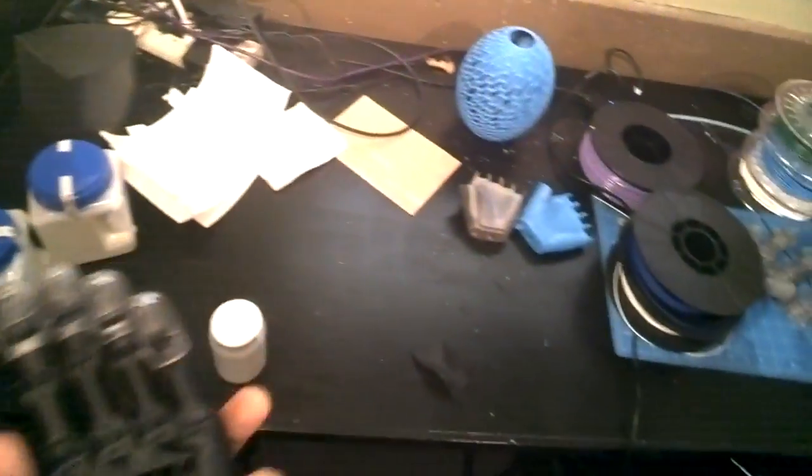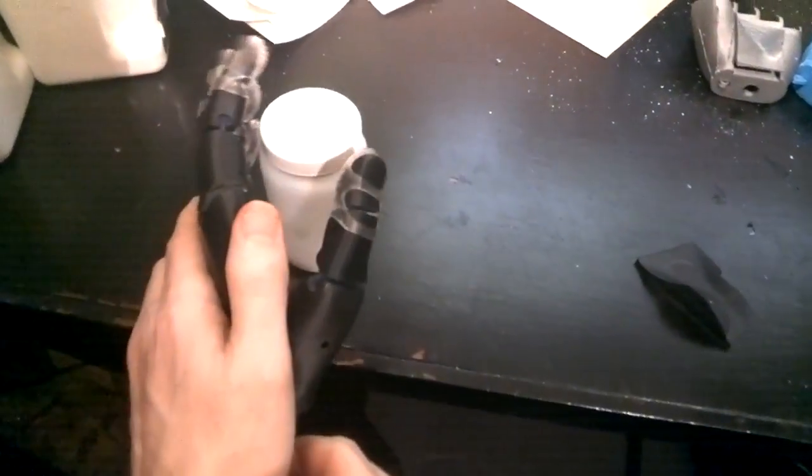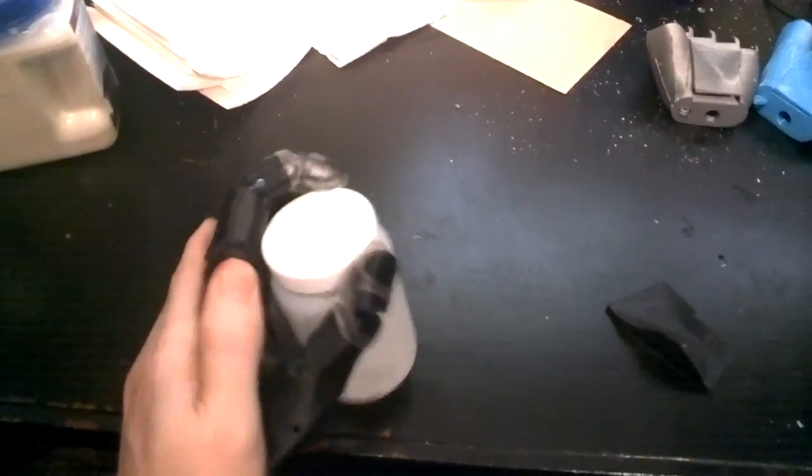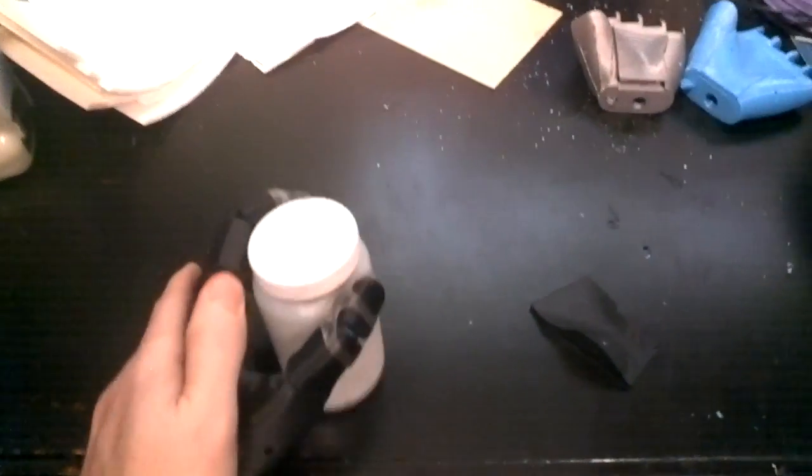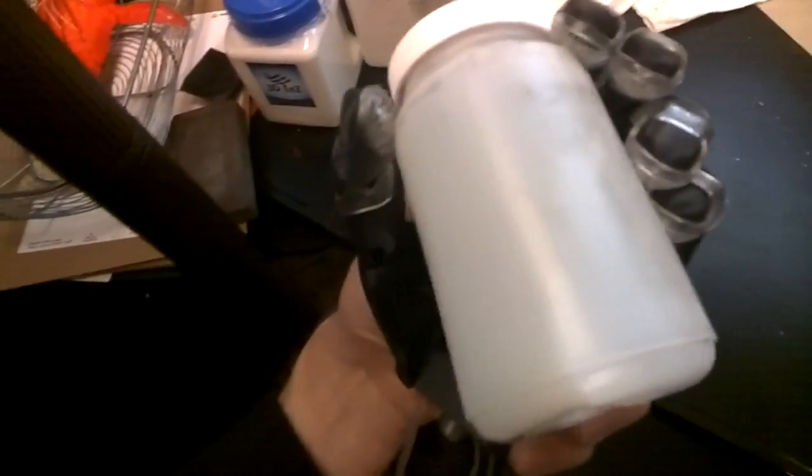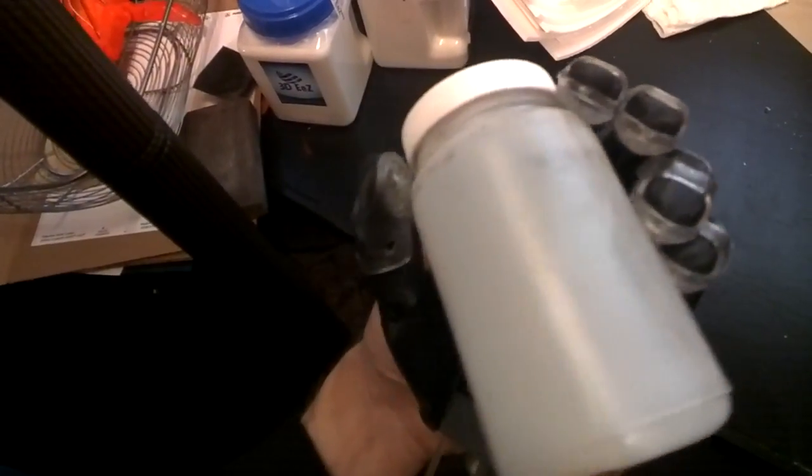So you can see that, for example, in picking up an object like a bottle. And you can see here how it's got a fairly compliant grasp. The fingers are all connecting down.